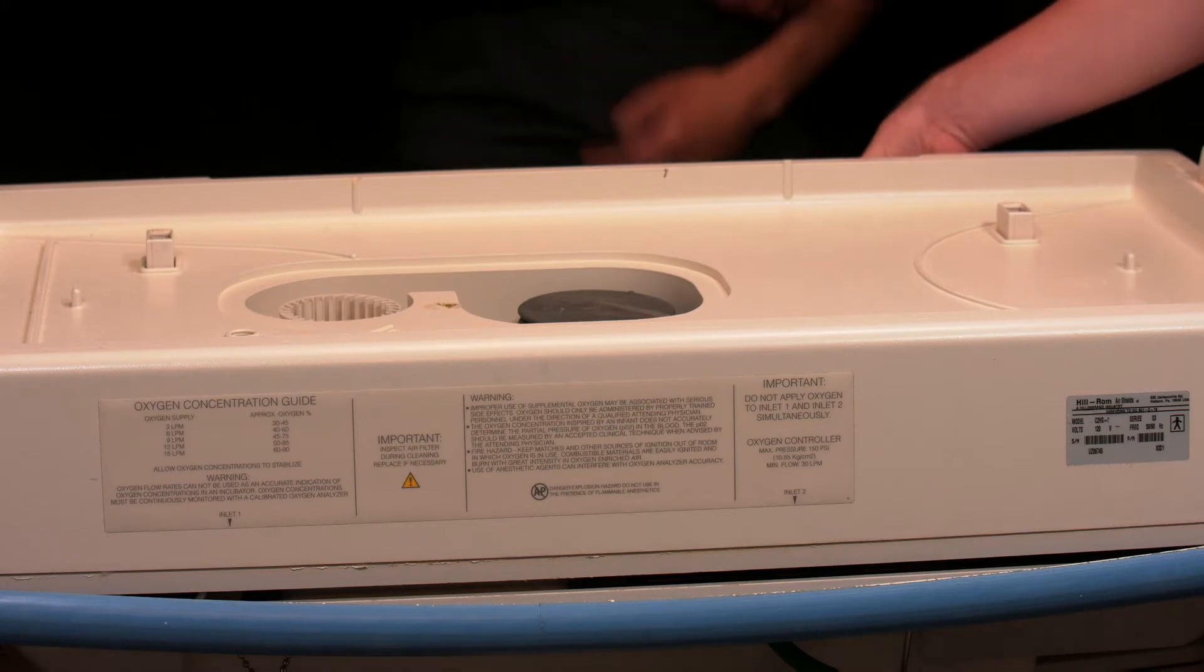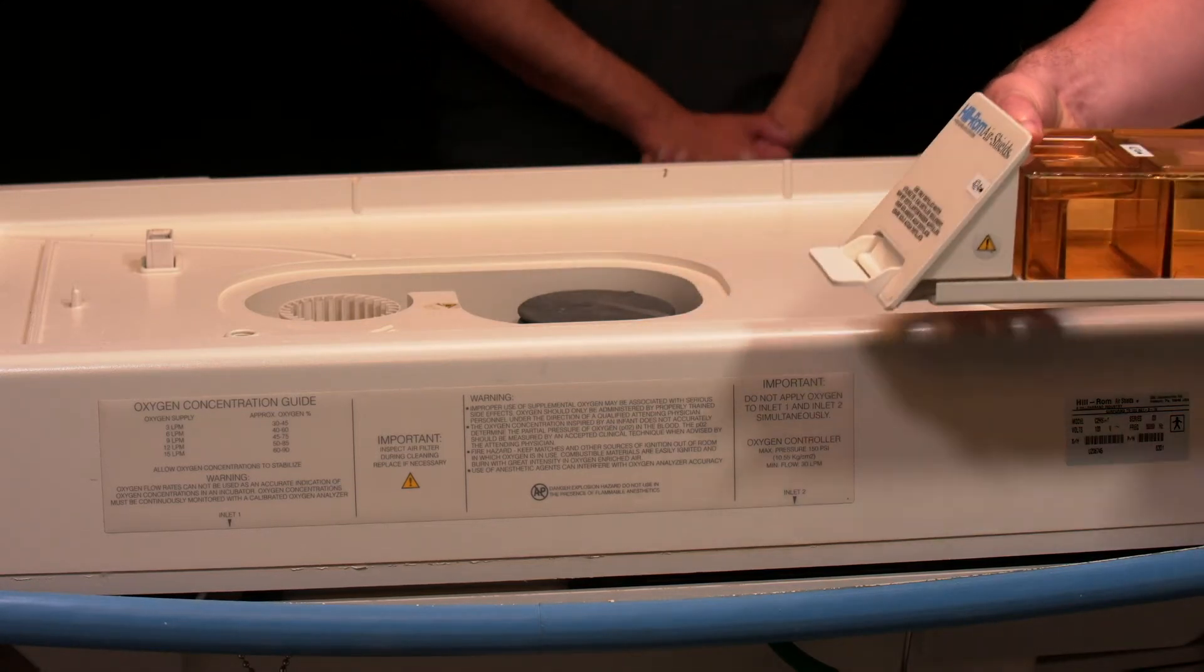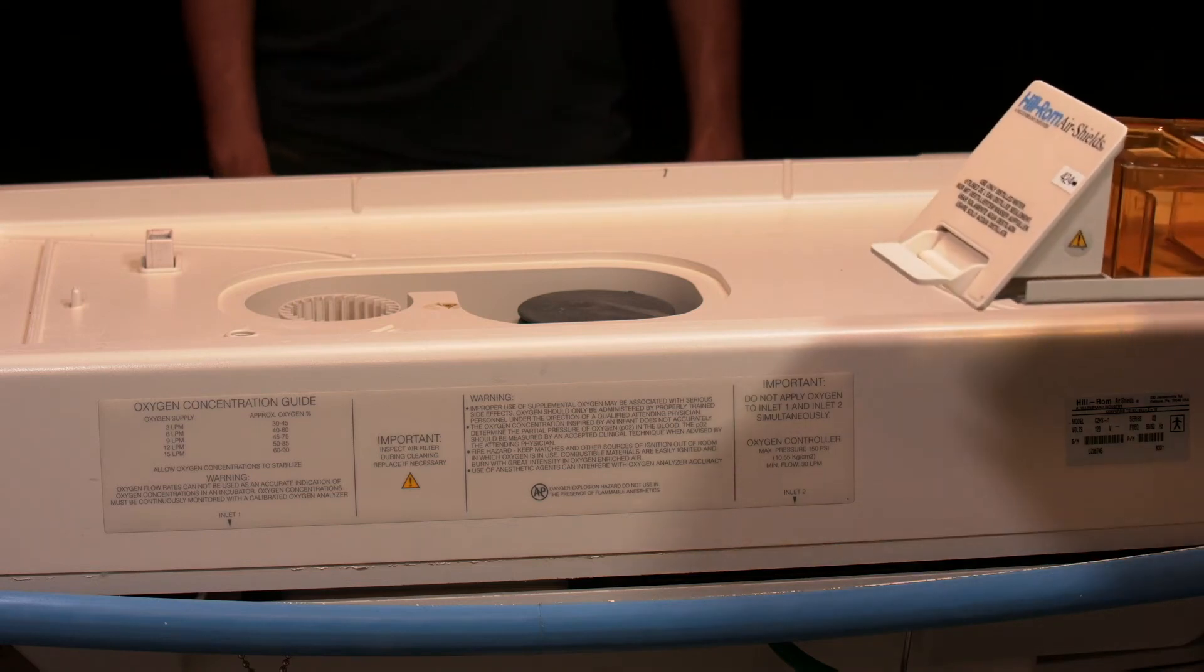Next, you have to take out the water filter in the back, which looks like this, as that will spill if you try to open the case with it inside.